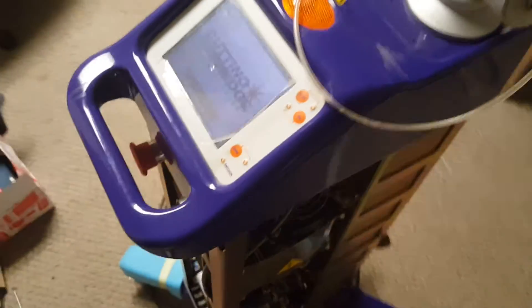I'm going to turn this on — here's what the laser looks like when it tests. I've got my glasses on, just so you know.